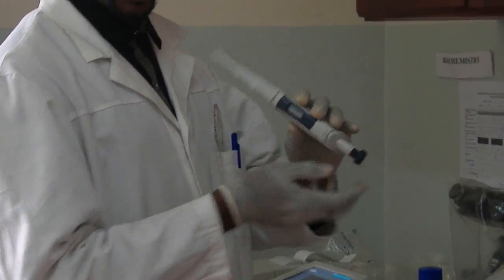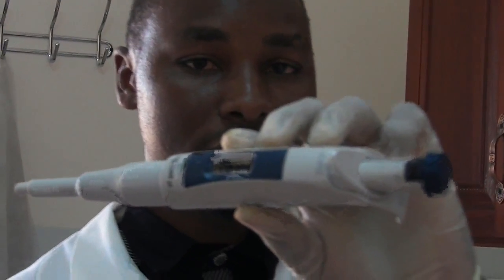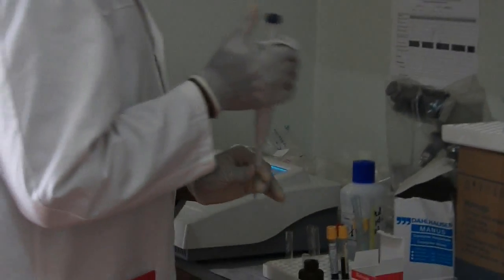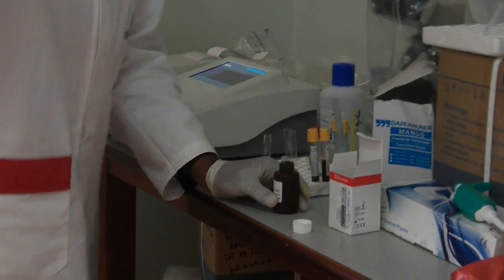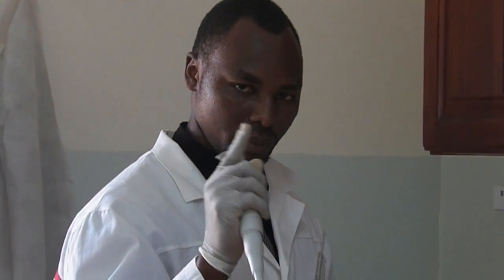You have to be very accurate. You can see those numbers — exactly 1,000 microliters. Get your tip. We are going to pipette exactly 1 ml and transfer it into the test tube.